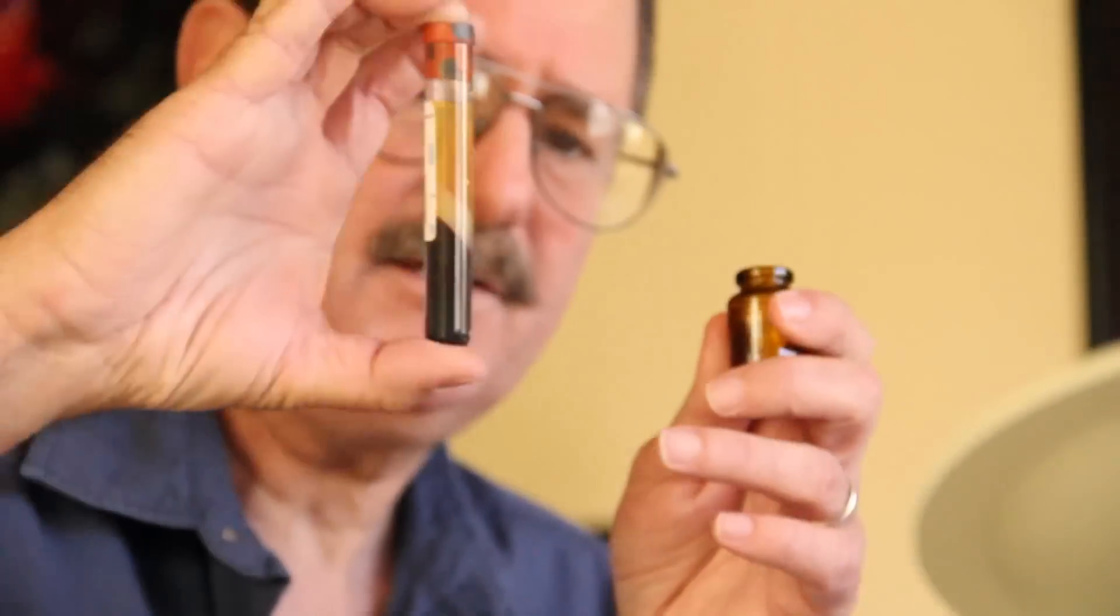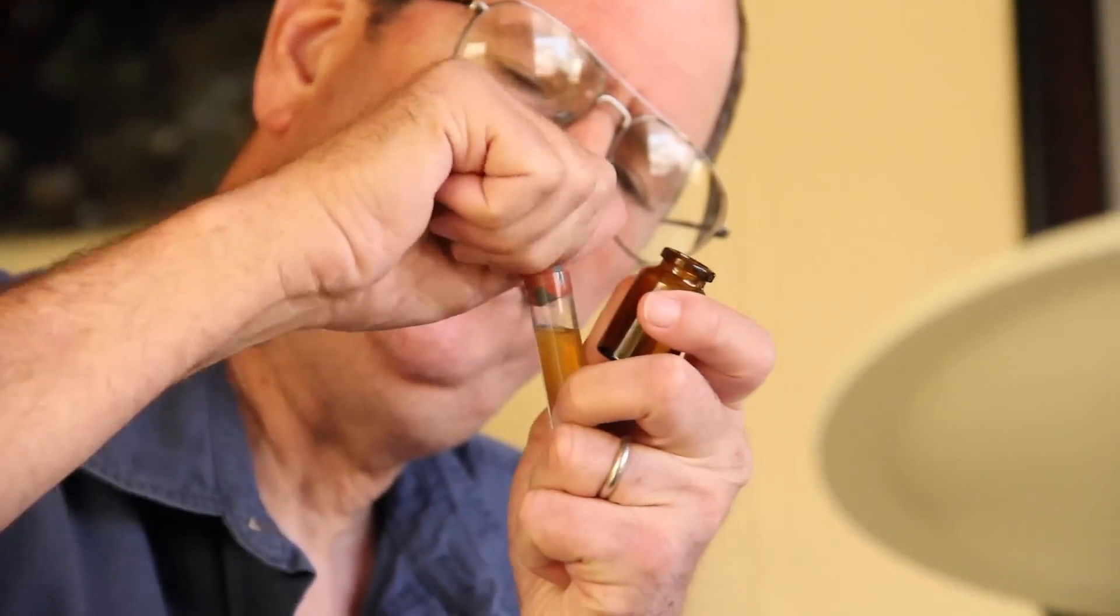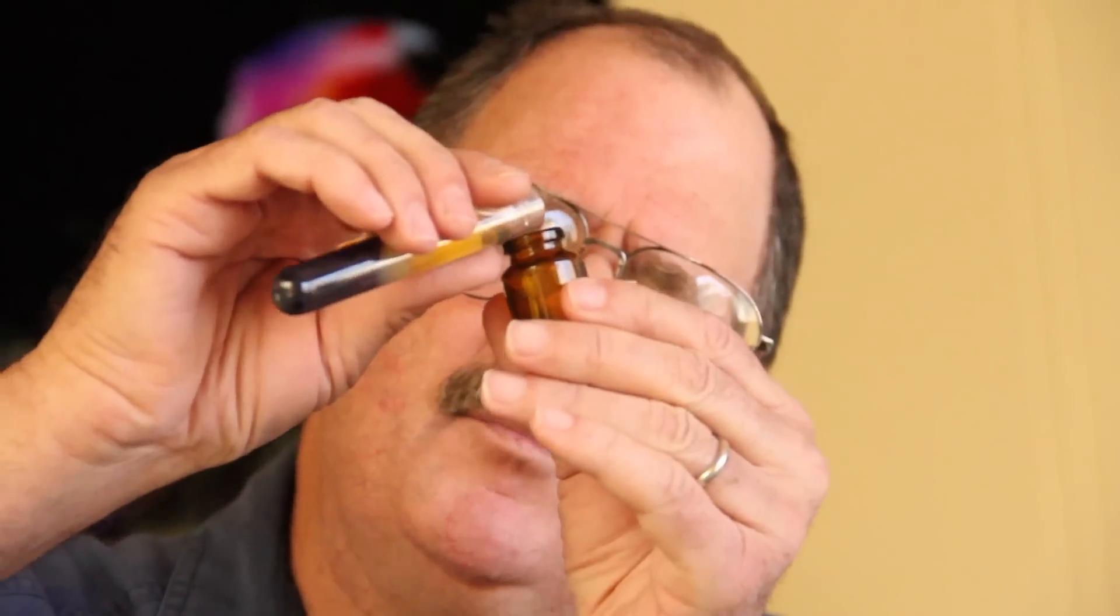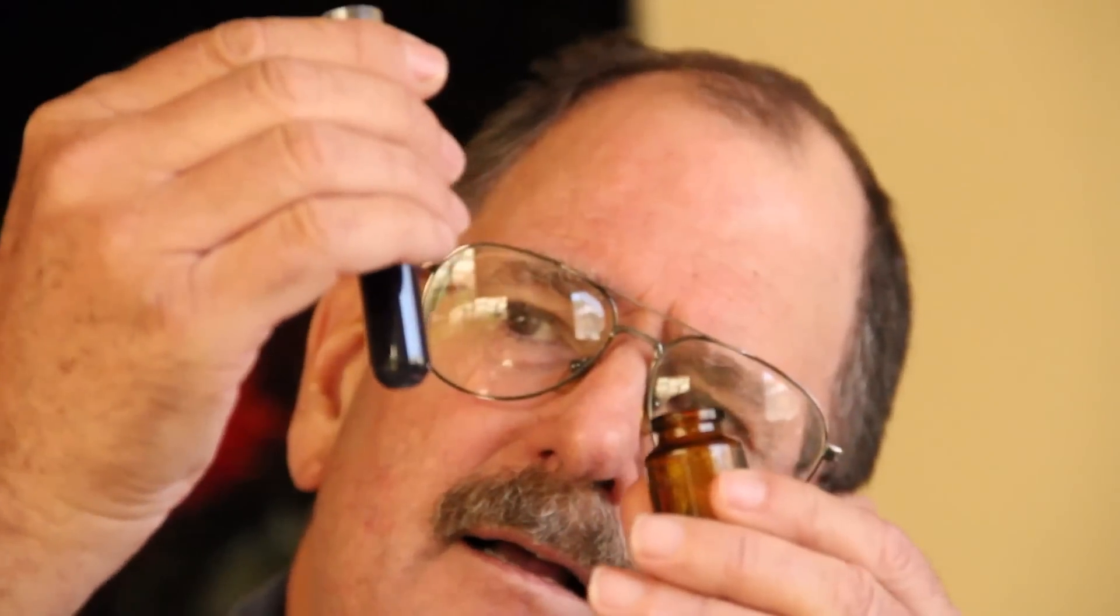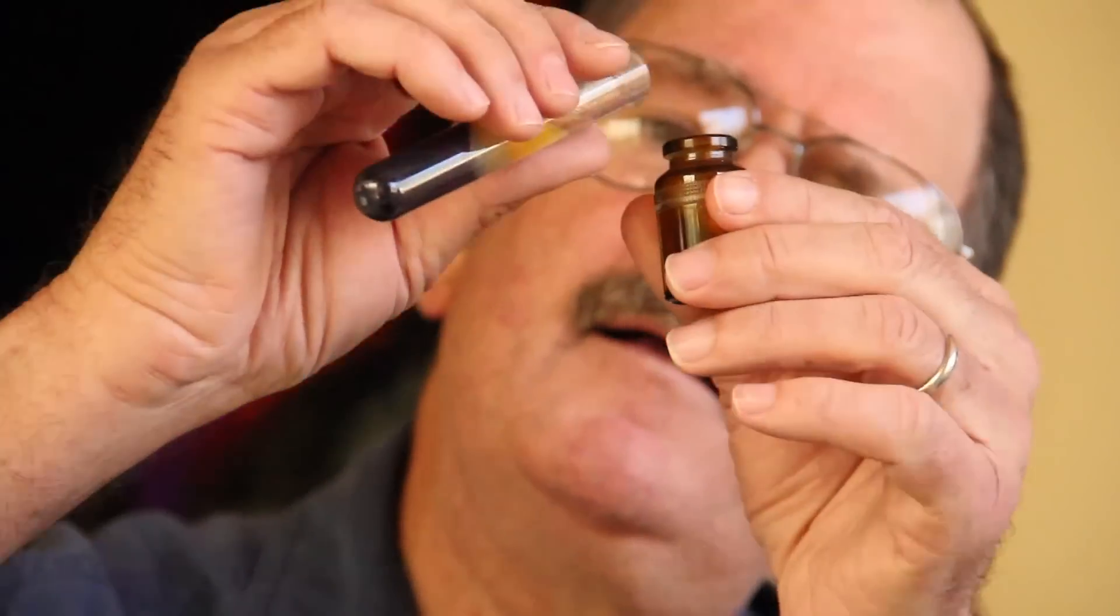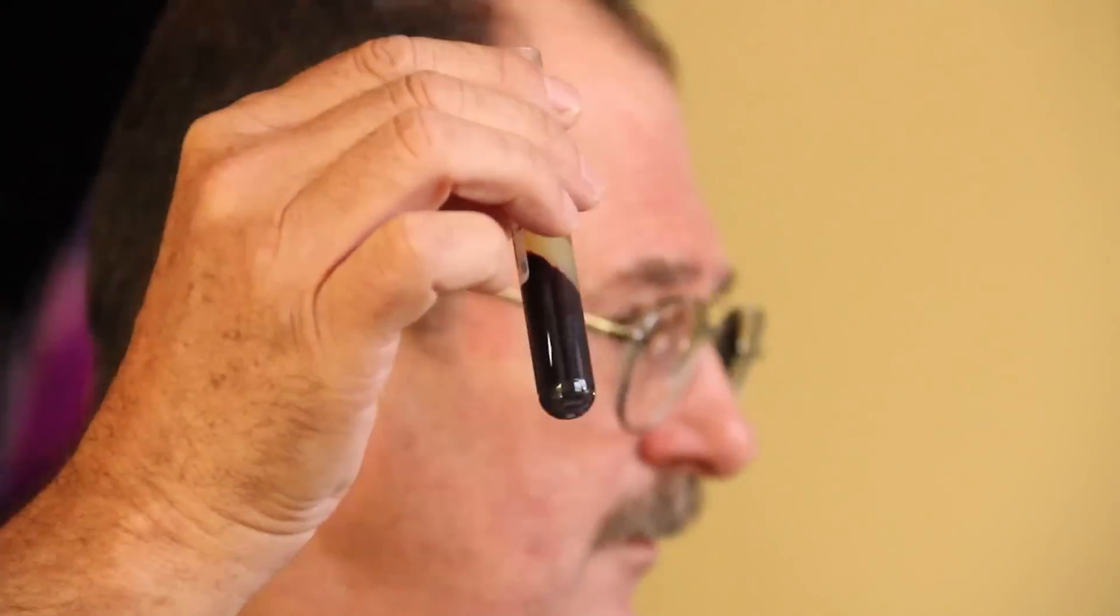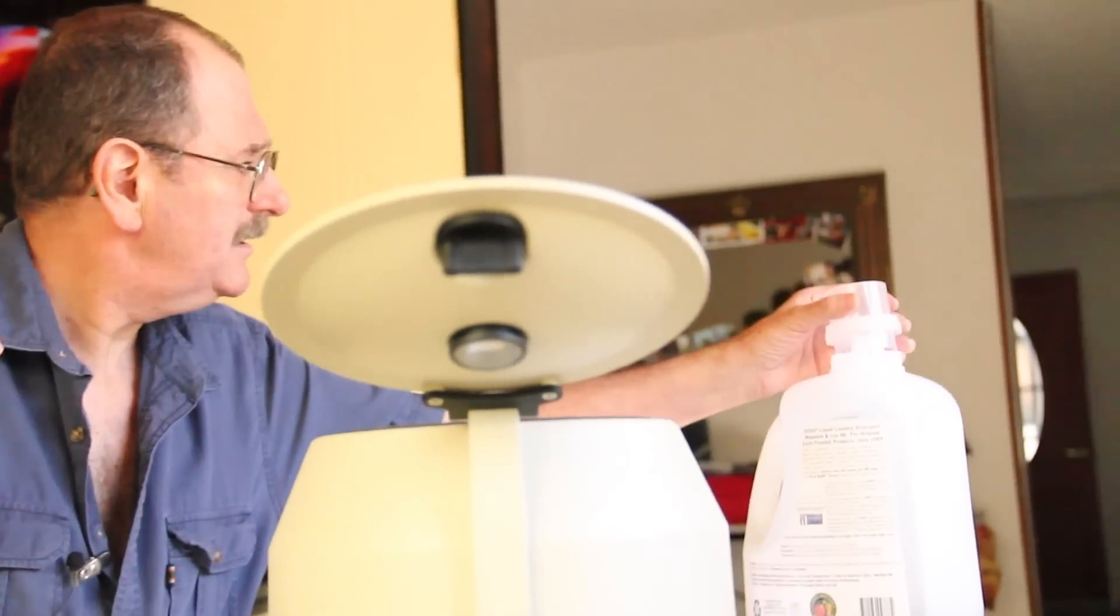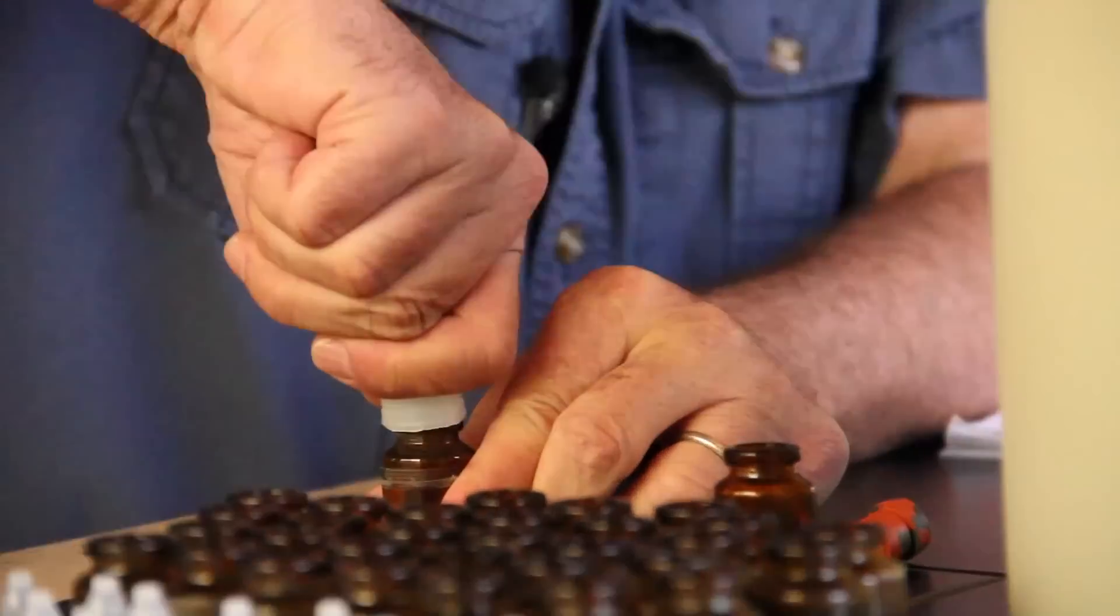Here's how I do it. Pop off the rubber stopper, pour into the first bottle, then the rest into the second one. Now I'm going to discard all of the tubes and put the tops on the eyedropper bottles.